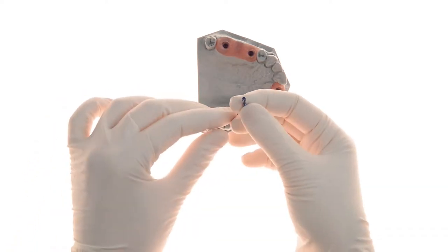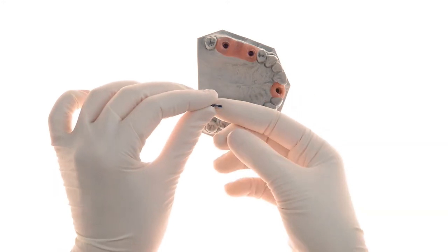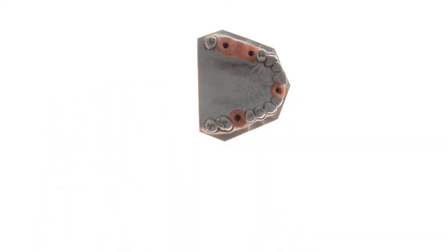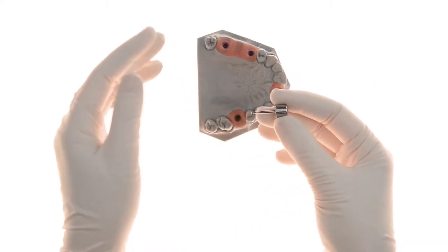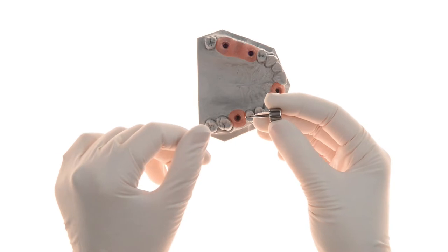This is the specialized screw that comes with the EasyBase. And this is the specialized screwdriver which has a unique tip. This design allows safe access from multiple angles, even up to 20 degree angulation.